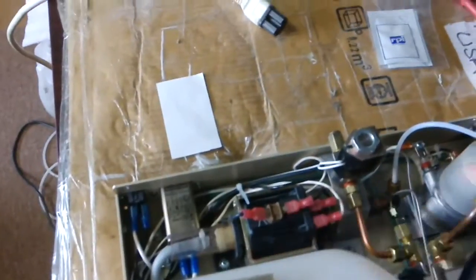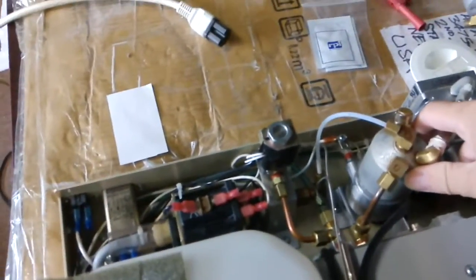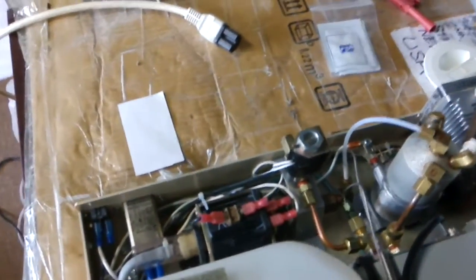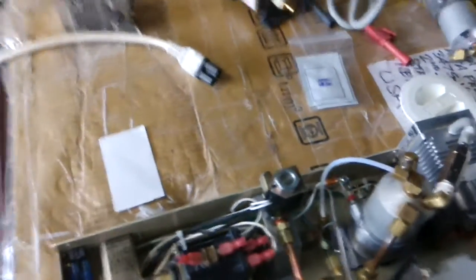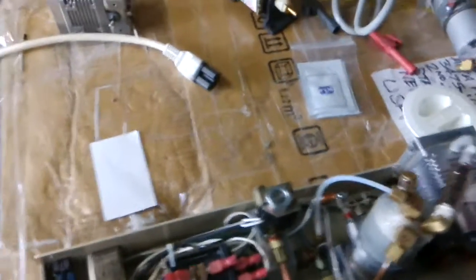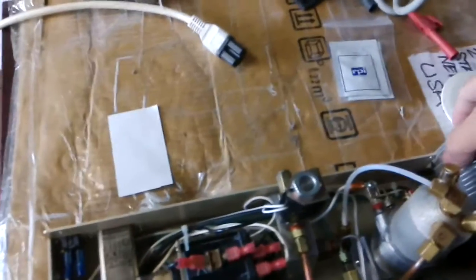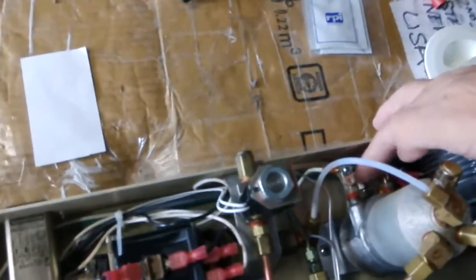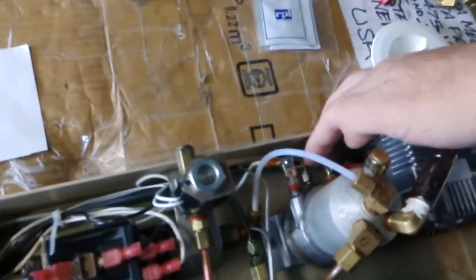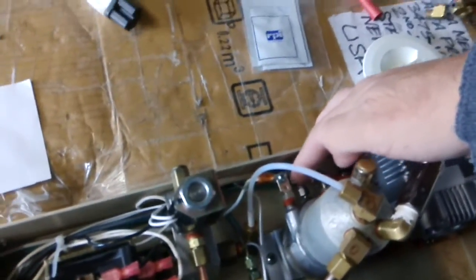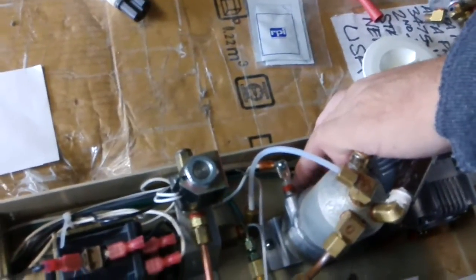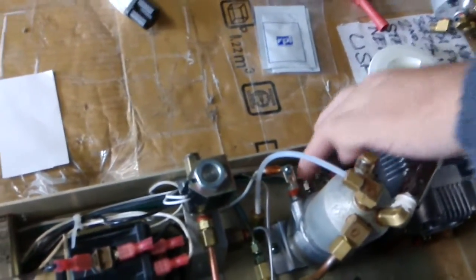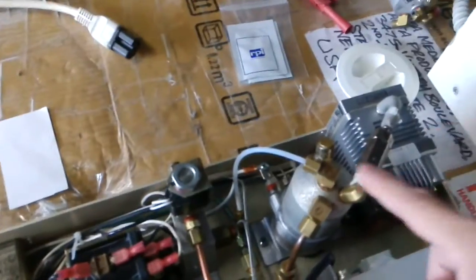This is the water pump - it pushes the water inside the boiler to generate steam that goes inside the cassette. There's a lot of protection. Underneath the boiler, there's a thermal fuse that when the temperature is too high will cut power and protect the machine from overheating the boiler.